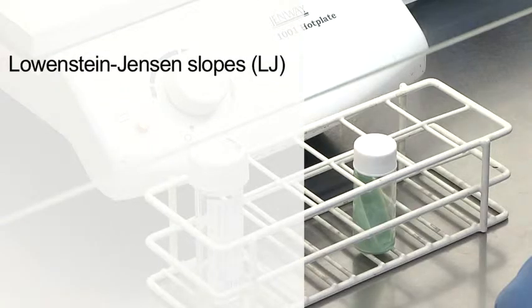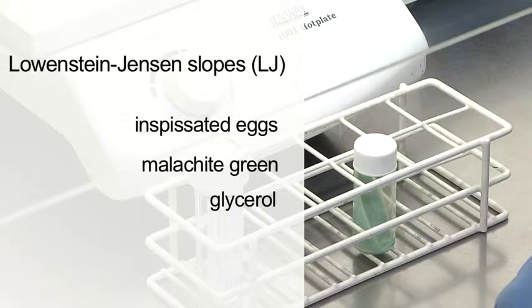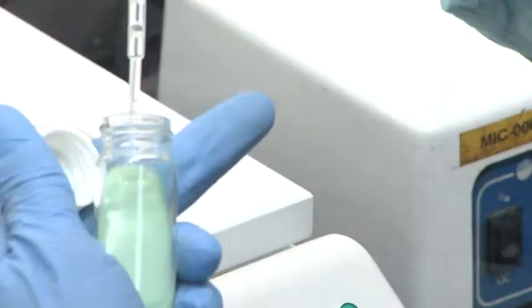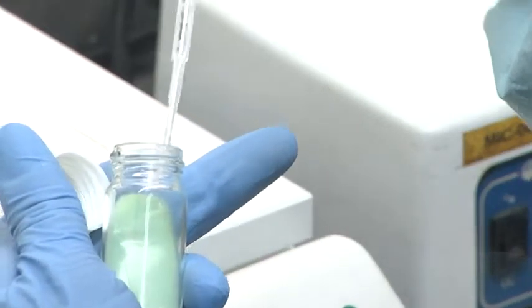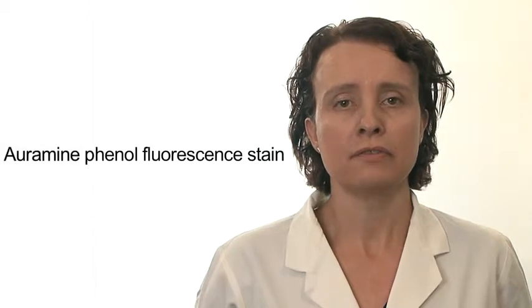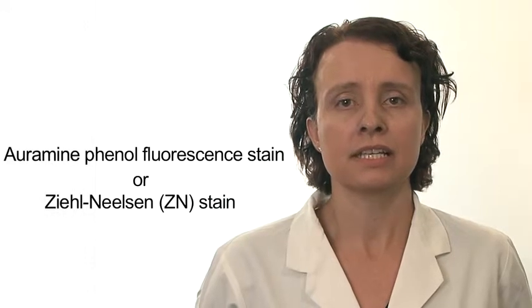Lowenstein-Jensen slopes, LJ, are the main solid media used to culture mycobacteria. It contains inspissated eggs, malachite green and glycerol, and some slopes have pyruvate added to them. LJ slopes are incubated for 10 to 12 weeks at 37 degrees and need to be examined weekly by eye, with positives usually appearing much slower than liquid culture, between 23 and 30 days. The smear made from the decontaminated sputum deposit is stained by one of two methods: the auramine phenol fluorescent stain or the Ziehl-Neelsen ZN stain.